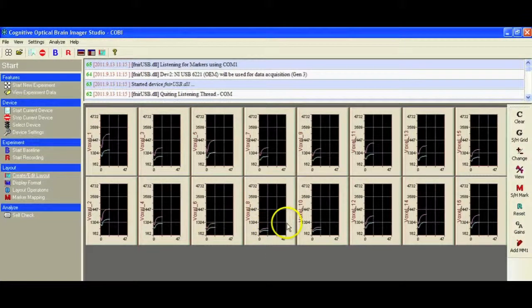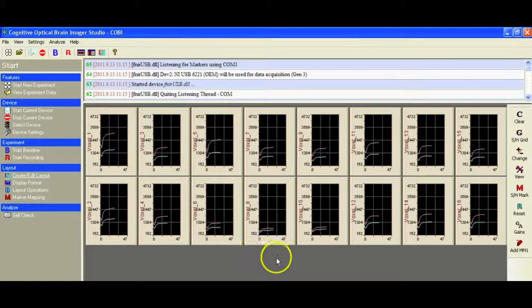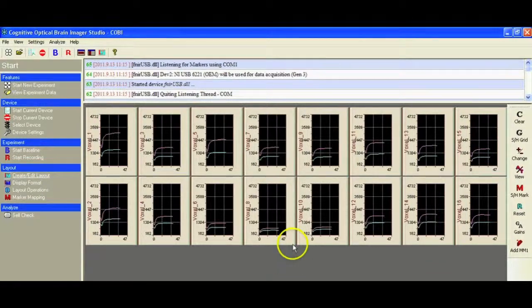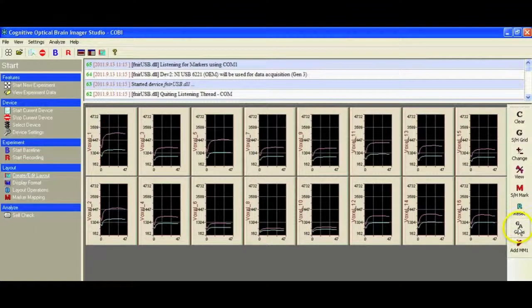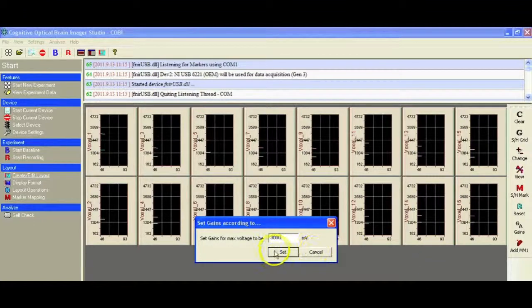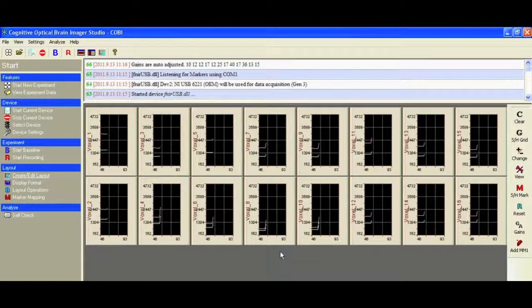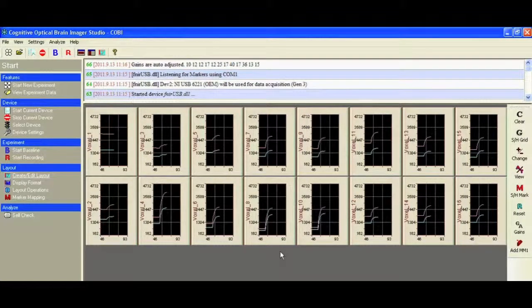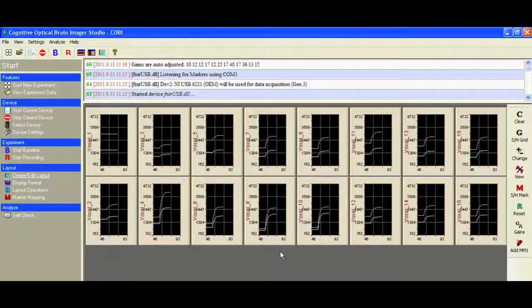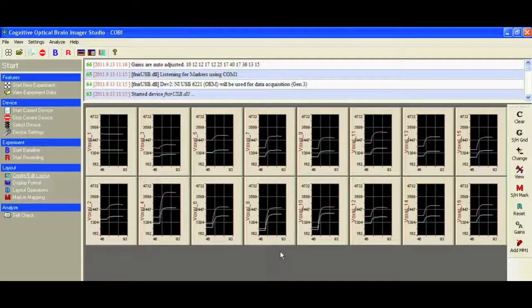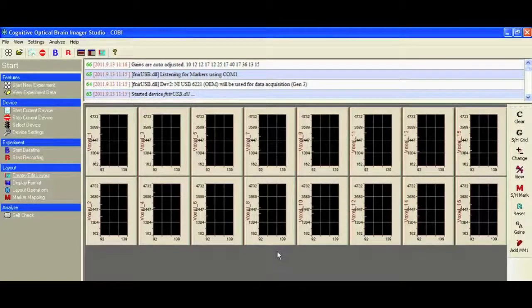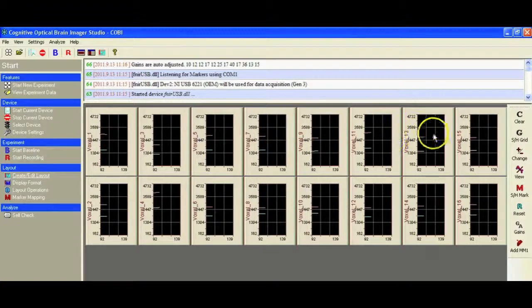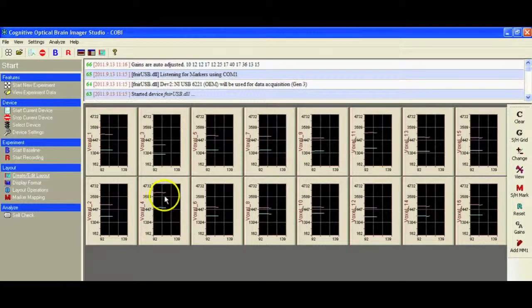If you've got one or two that are still a little bit on the low side, but everything else is falling in there, you can probably start at this point. These may be a little low. But on the right-hand side, there's a balance option over here labeled gains. If I just set this to 3000 and we hit set, what we're looking for now is to make sure that each of these channels are all falling in that 700 to 3000 window.